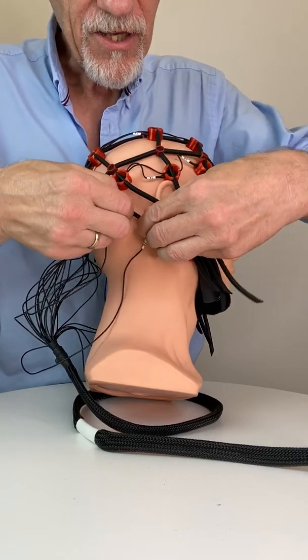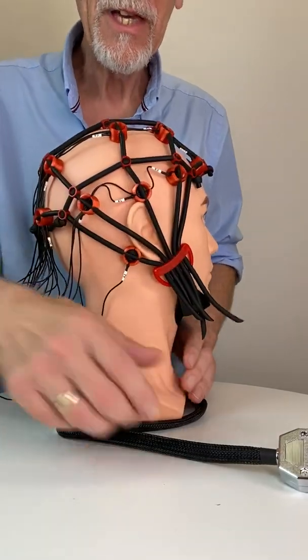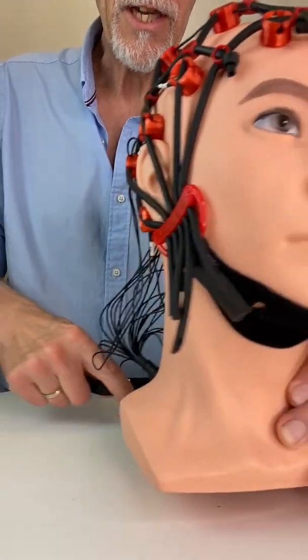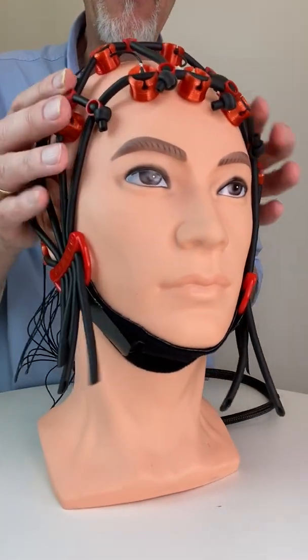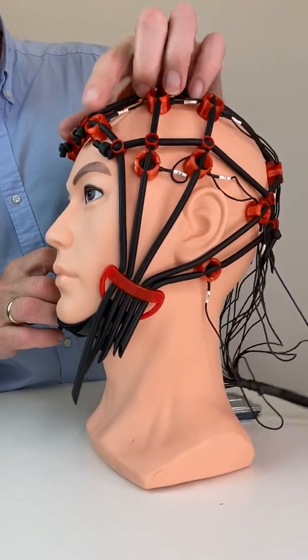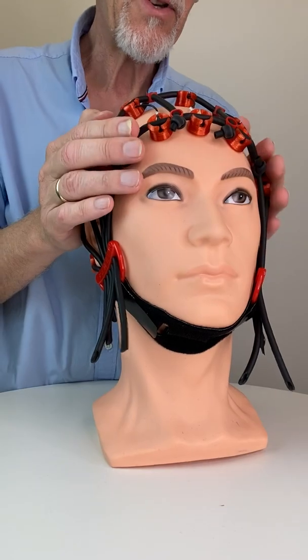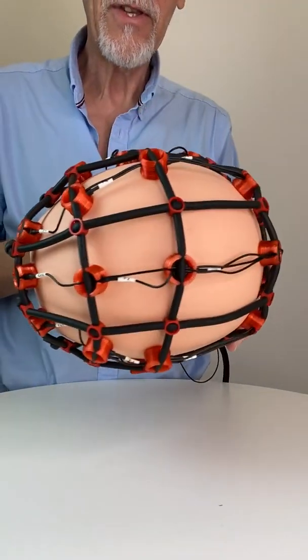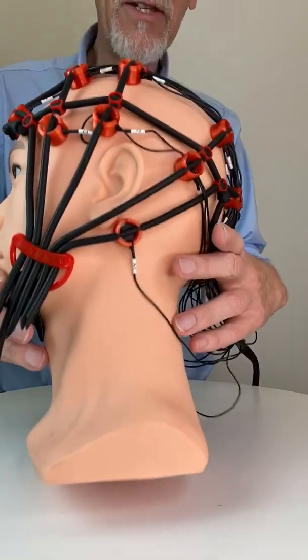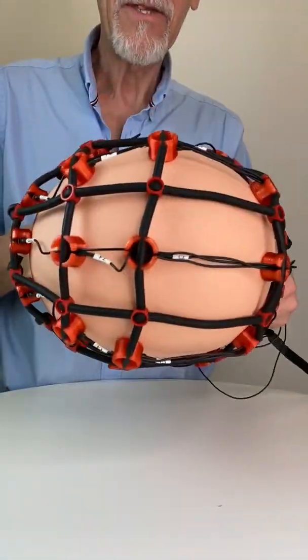If you have a real human being you would not act like this. Of course you are the one that moves and you are not holding the head like this. You manipulate in a more, less rigid way than I do here. I'm trying to correct the front line a little bit more. I see I have a good fit of the electrode here. This line is not so straight — I can correct it. I just pull a little bit here, put a little bit there, and then the line is straight.